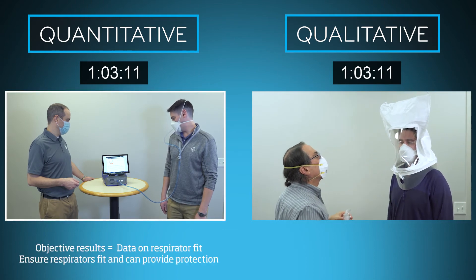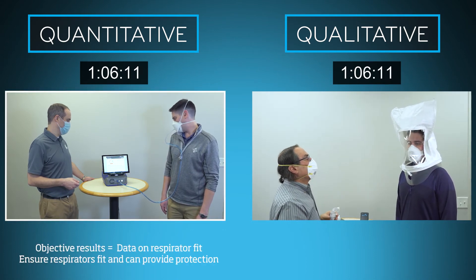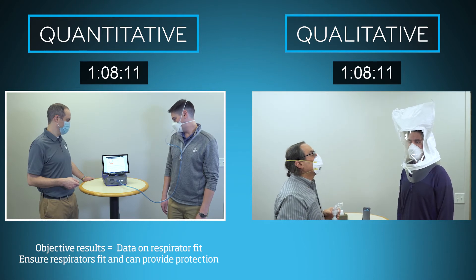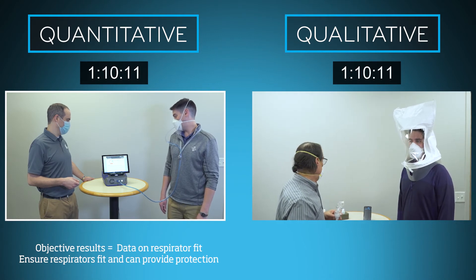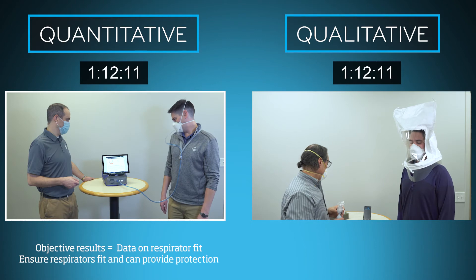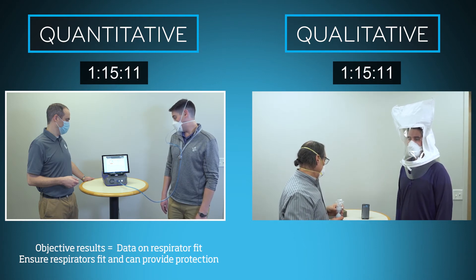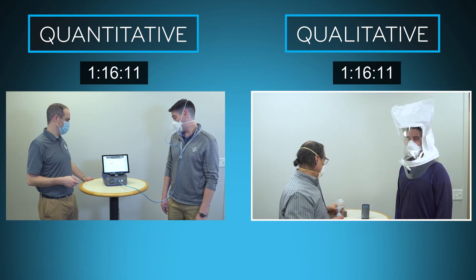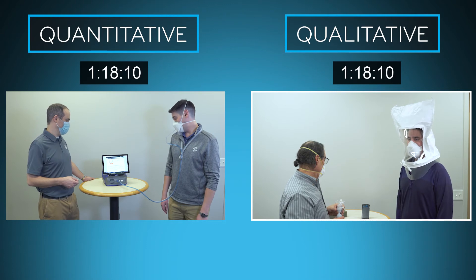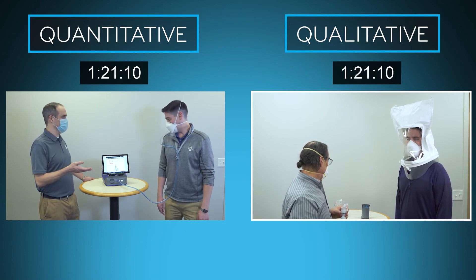With quantitative fit testing, you get objective results that provide data on a respirator's fit and performance throughout the fit test. With this information, you can better ensure that respirators will fit and protect your employees in real-world conditions. Qualitative fit testing simply cannot provide the same insights you gain with a quantitative fit test.